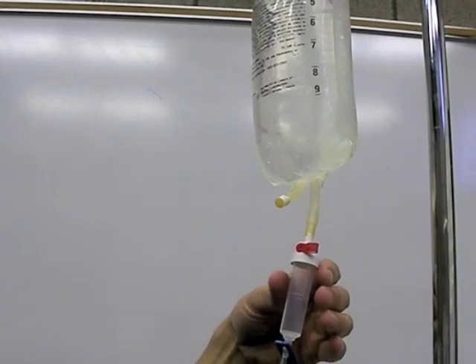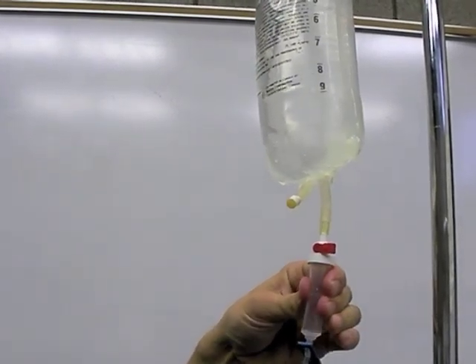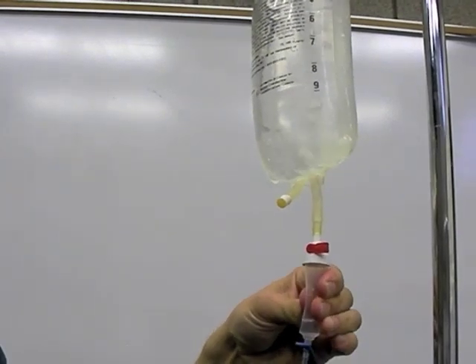Fill the drip chamber by squeezing it until the fluid reaches the imprinted line or two-thirds full if the line is not present.